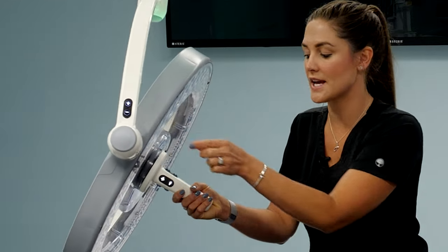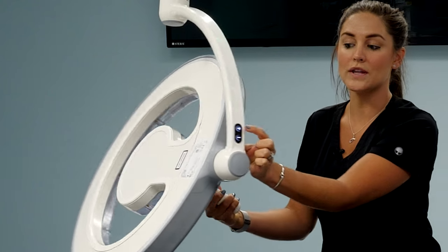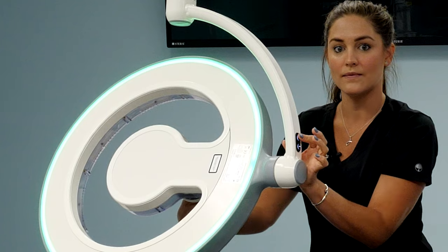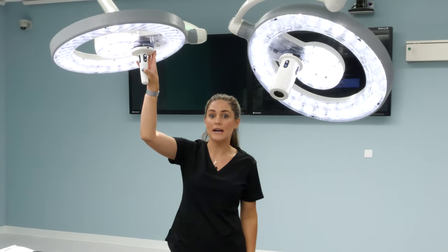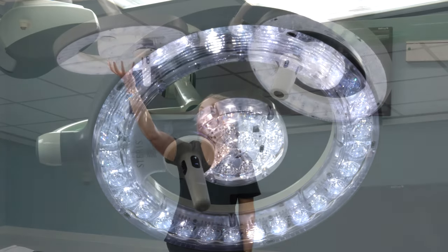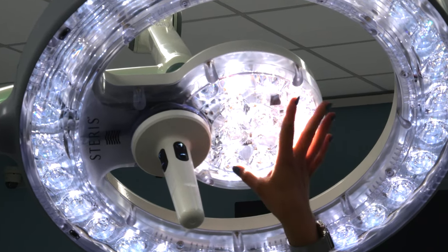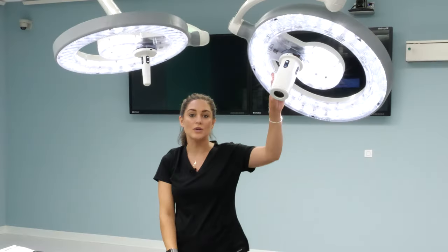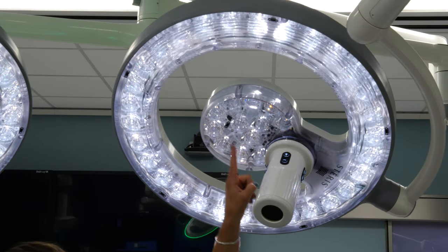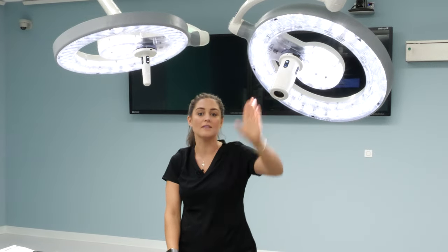By holding the negative on the cardanic and the negative on the handle together, the light will shut off. By holding the positive and positive together, the light will turn back on. The handle is slightly offset for a couple of reasons: one is that it allows more LEDs to be in the center of the light for a tighter focus or smaller spot size. The other is that when you have an in-light camera, the lights typically live behind the surgeon's head, which allows for a greater viewing angle when recording or viewing something in the sterile field.